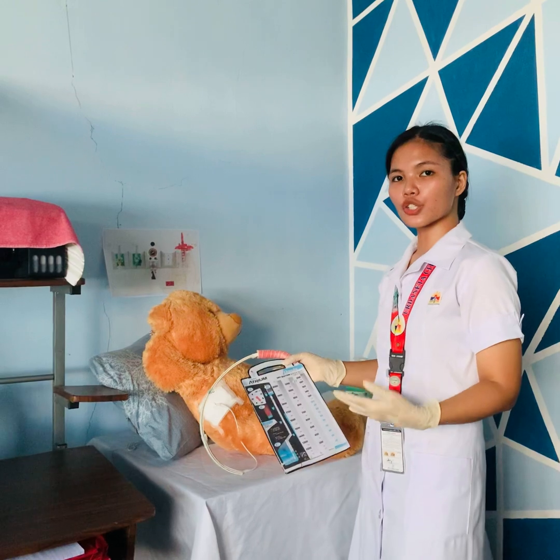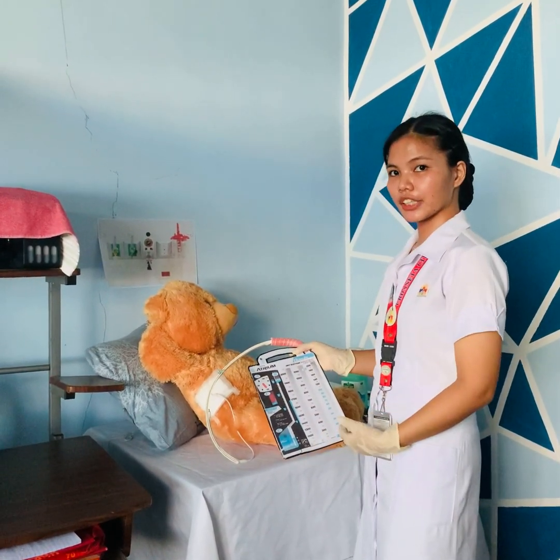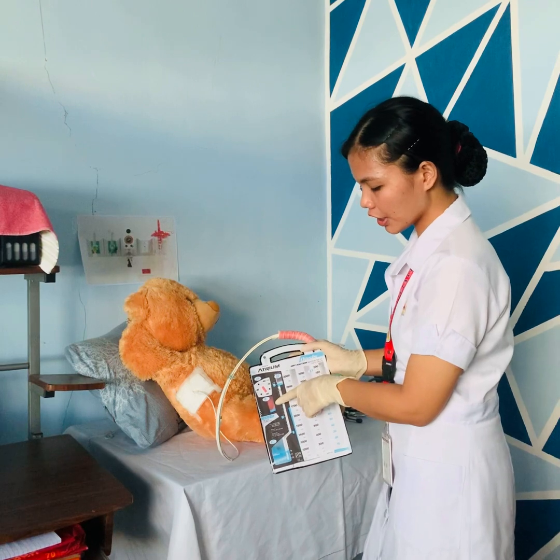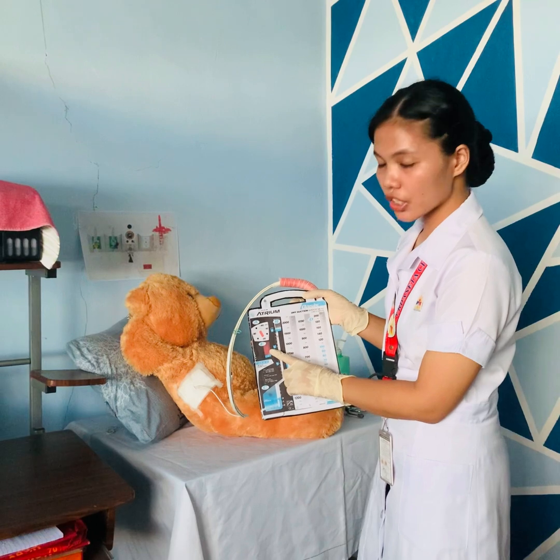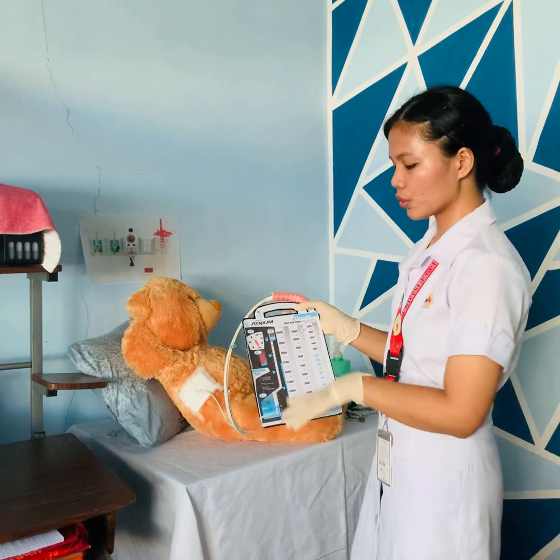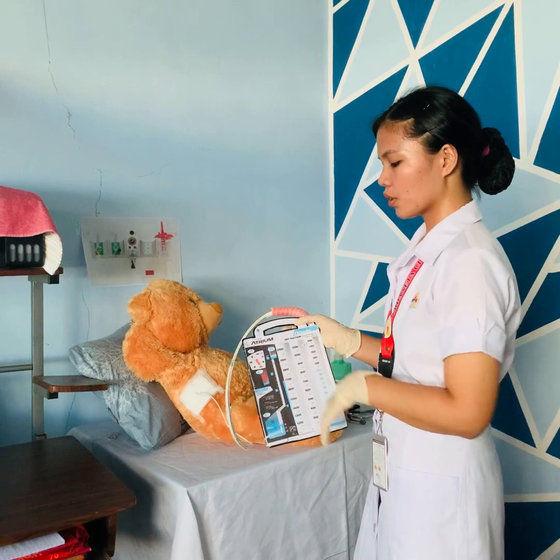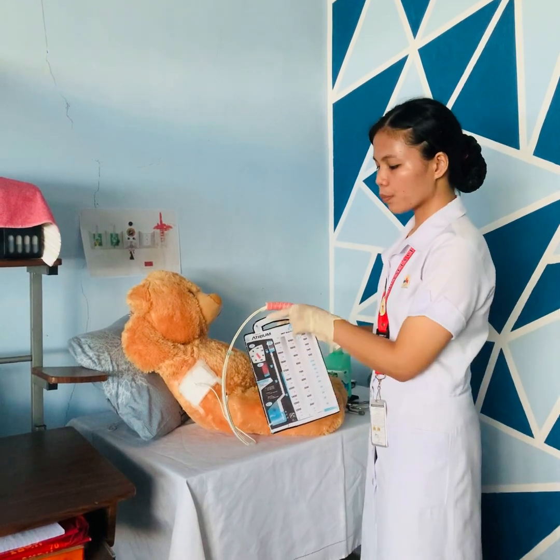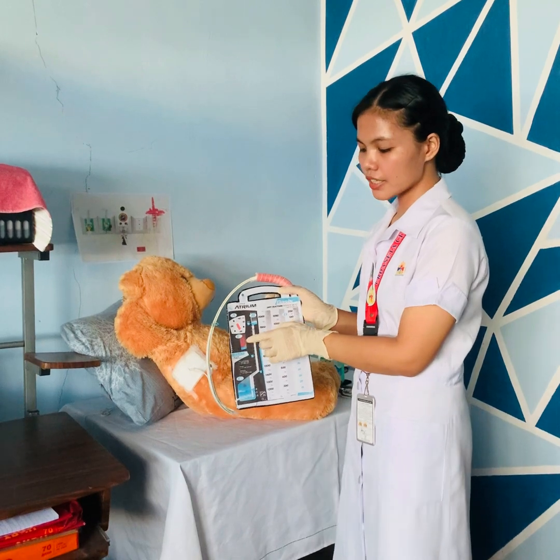Ensure the suction control dial is set to usually 20 cm. If suction is ordered, the float should be clearly visible in the window — it appears orange and normal bubbling is expected. If there are no bubbles, ensure the tubing connection is secure and turn the suction higher. If suction is not ordered, the suction port should be left open to air and nothing should appear in the suction window.